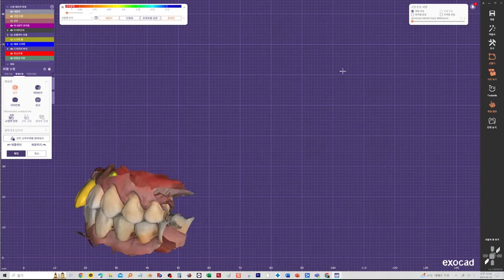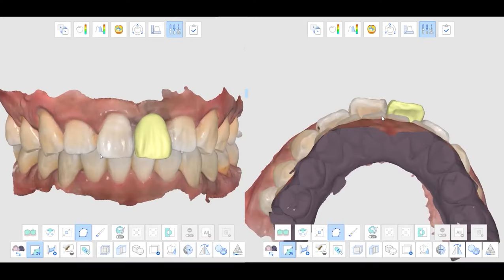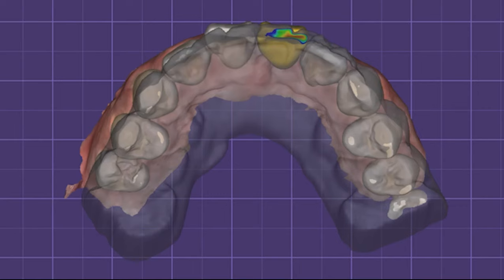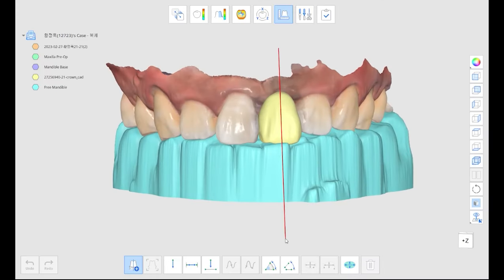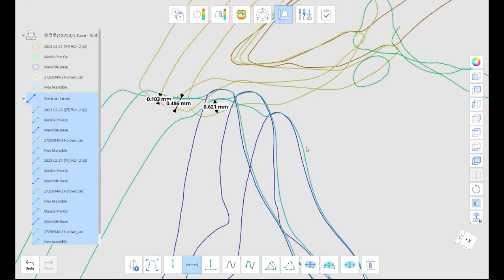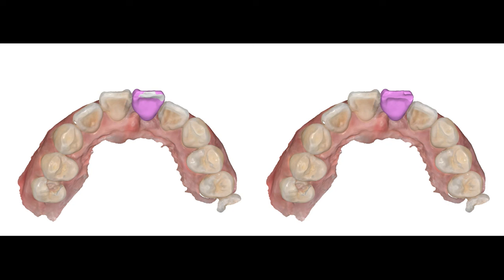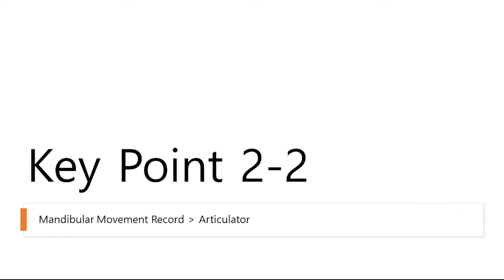Most of the time, when we fabricate a crown like this, we see a significant amount of interference with the forward movement of the mandible, especially for anterior teeth. Let's bring in a bite that reflects mandibular movement and adjust the occlusion — we're going to see a significant amount of adjustment. If we measure it, we'd get a value over 600 micrometers. With this amount of intraoral occlusal adjustment, the crown length may be shortened, and you may have to extend it buccally. If the crown is made with only articulator adjustments, it may need to be ground down a lot or remade. Conclusion: using mandibular movement recordings to create a crown is more meaningful than using an articulator.